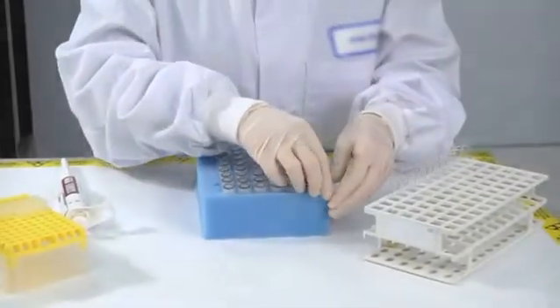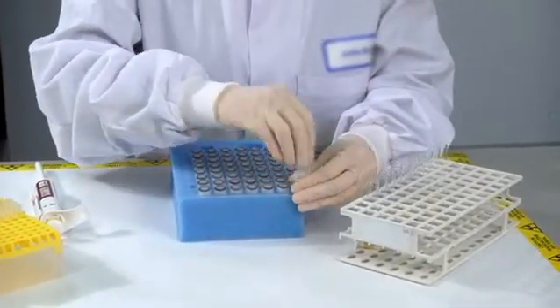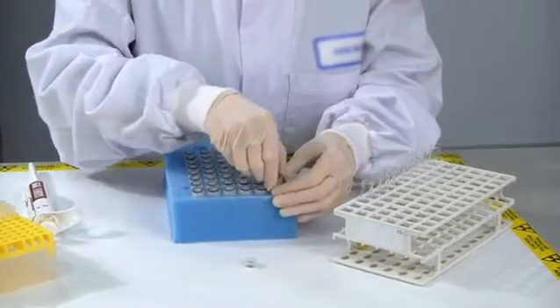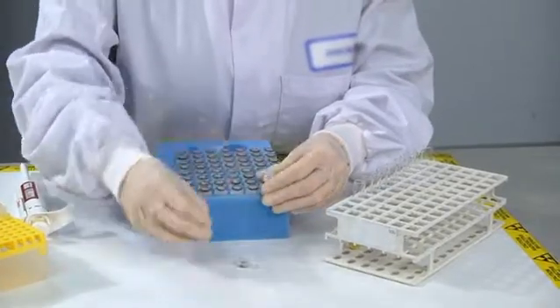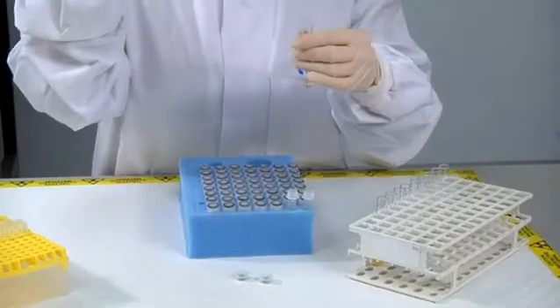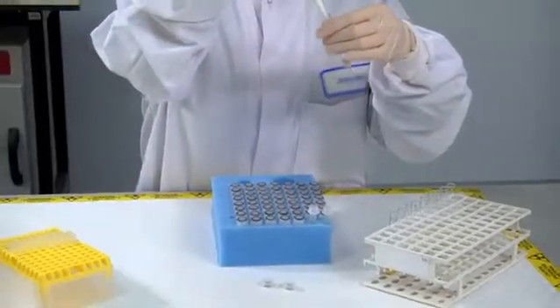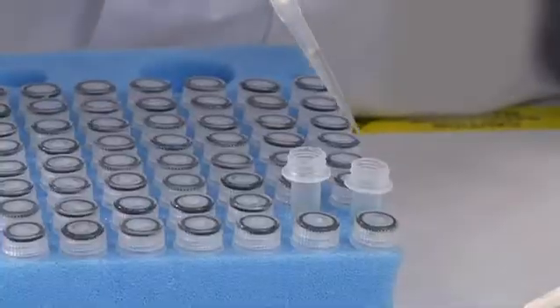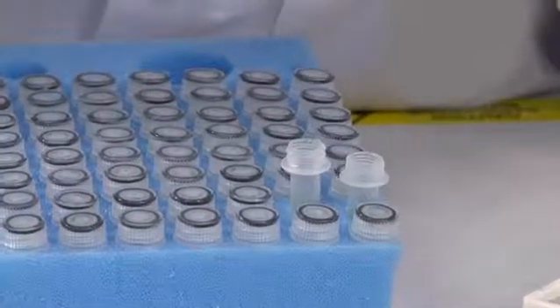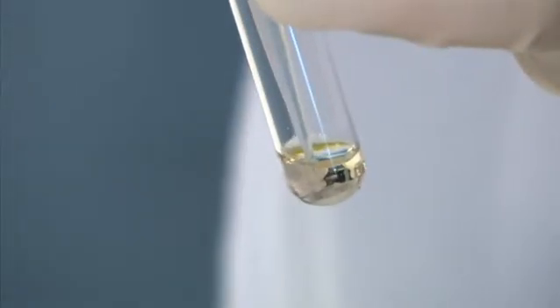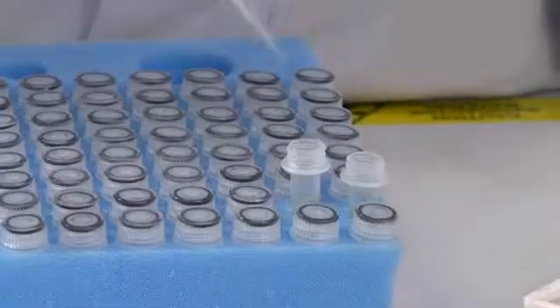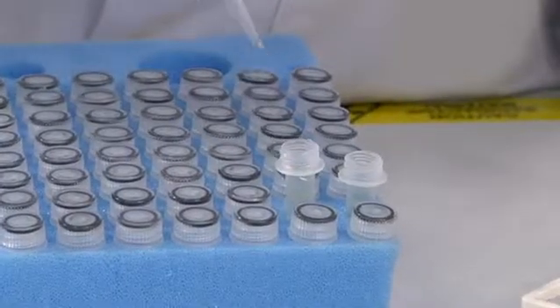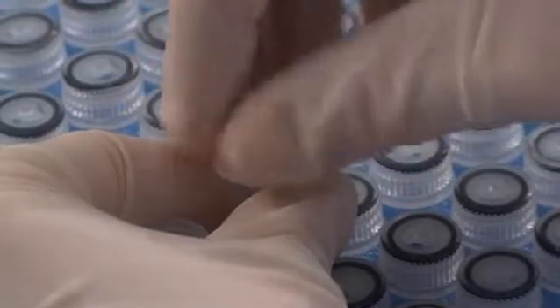Step 3: Remove screw caps from immunocapsules and add 100 microliters of delipidated sample or control to immunocapsules in duplicate. Replace caps securely.